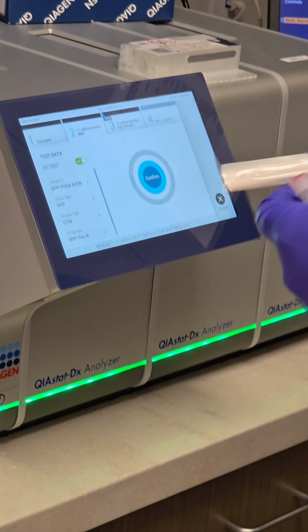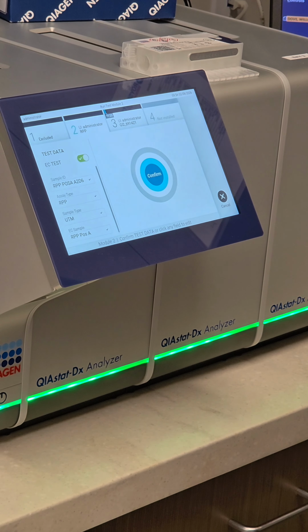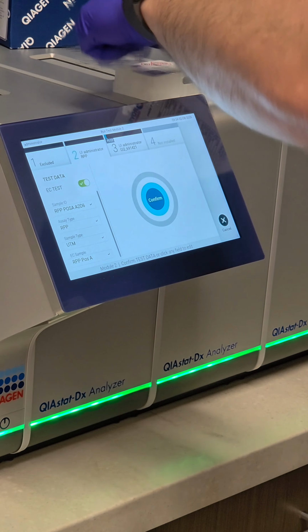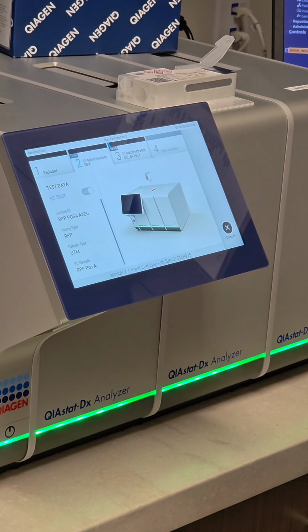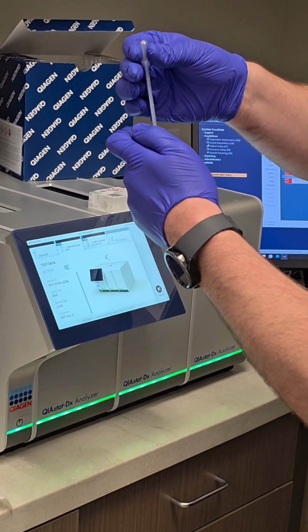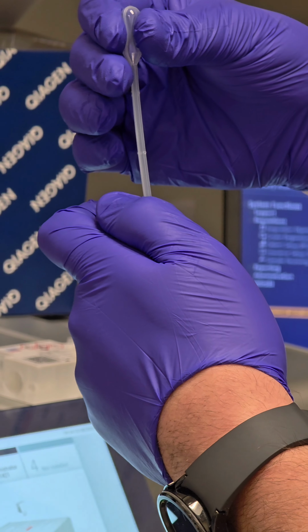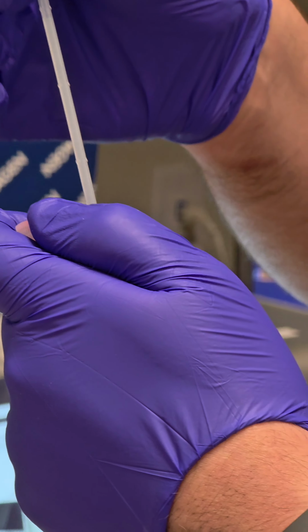Get our cartridge ready here. Again, we're kind of racing the clock. Open that up, hit confirm. There we go. It's going to open the bay there. Let's go up to 300. Didn't get enough, so let's squeeze it more and then go up. Almost there, a little bit more. And then we're just about to 300 there.